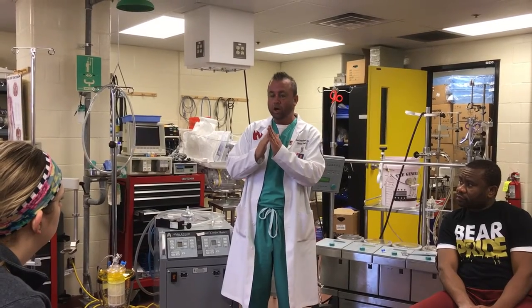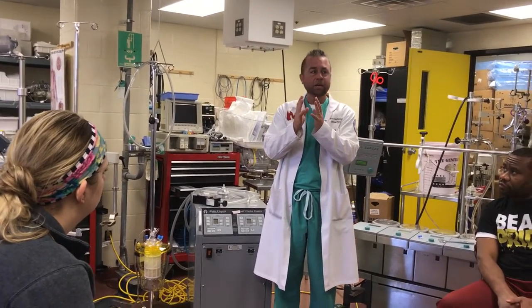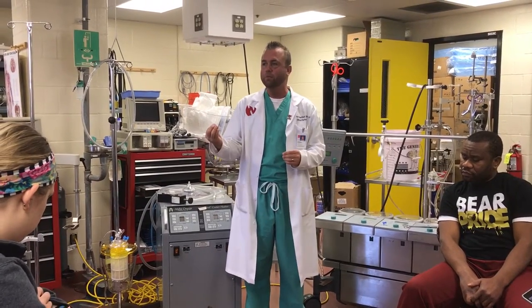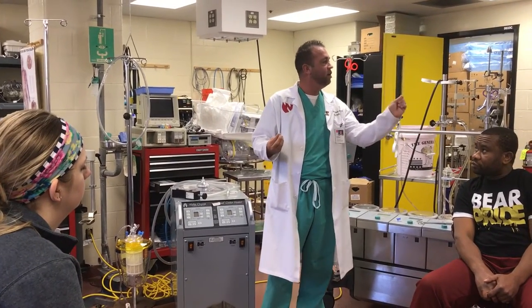The antegrade cardioplegia is going to stop the heart and create cardiac quiescence. When we run antegrade cardioplegia, we need the antegrade vent off — because that vent is wired into the antegrade cardioplegia line. If it were on, everything delivered into the aorta would come right back up through the vent. Our goal is to build up pressure in the ascending aorta to drive flow down through the coronaries, delivering high-dose potassium to stop the heart.